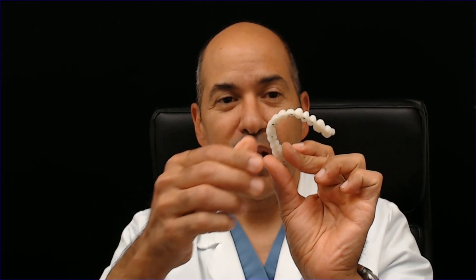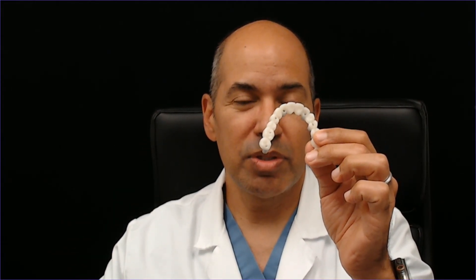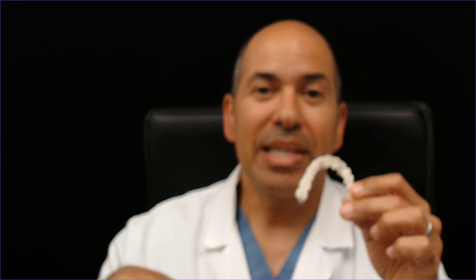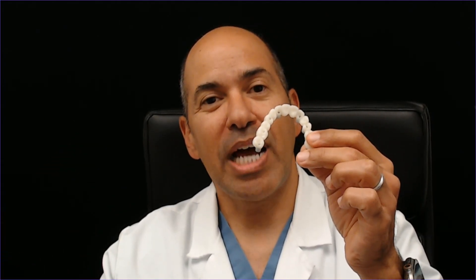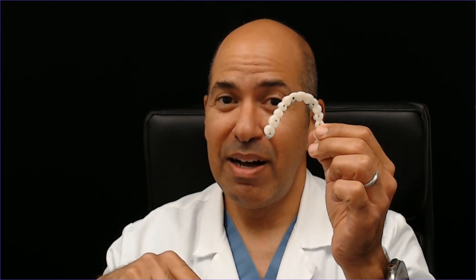Because they're breakable, the ways we prevent or reduce breakage is to design the connectors as thick as possible on the inside, at the gum portion, and to segment them. Instead of making them a round horseshoe, we try to make them into smaller pieces so if a piece breaks, you can replace it a bit easier. Long term, implants can lose bone easier on an FP1 bridge than on an FP3, because these implants are placed in a more shallow position where the gums and bone are more delicate. Some ways to reduce bone loss are procedures like socket shield or root banking.